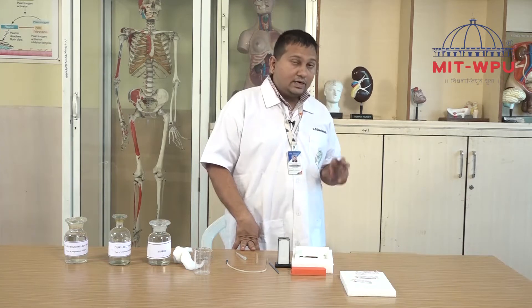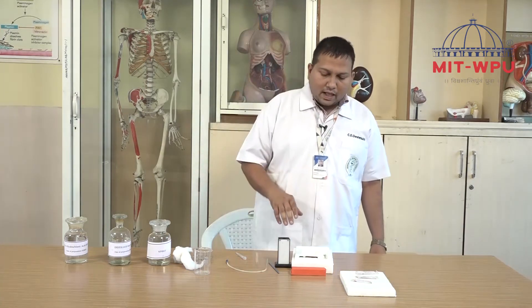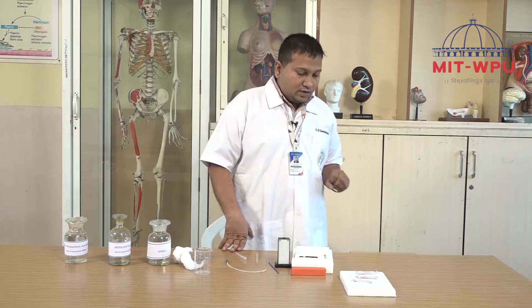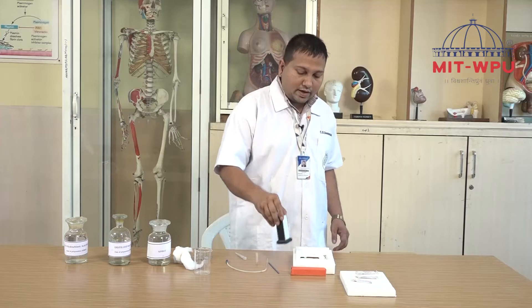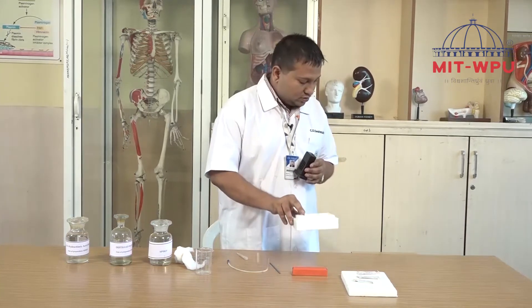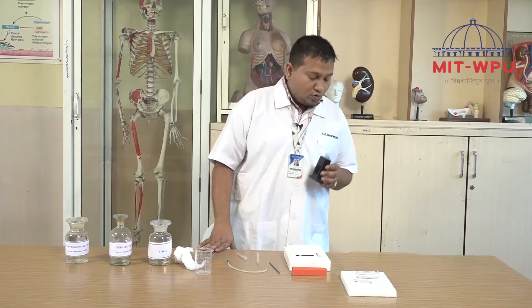In this experiment we are going to determine the hemoglobin of a body — whether it is normal or not. This experiment requires certain chemicals, instruments, and glassware. I will demonstrate what instruments are required. The entire instrument is called a hemoglobinometer.